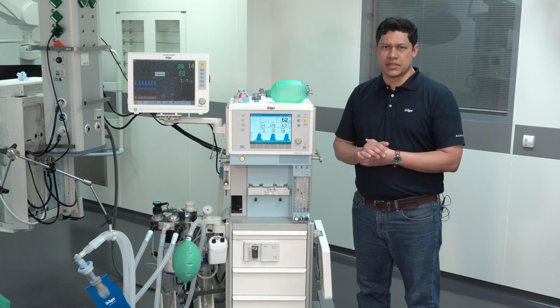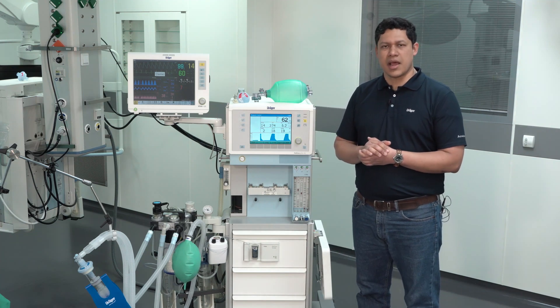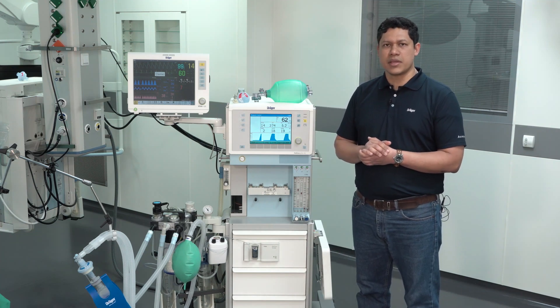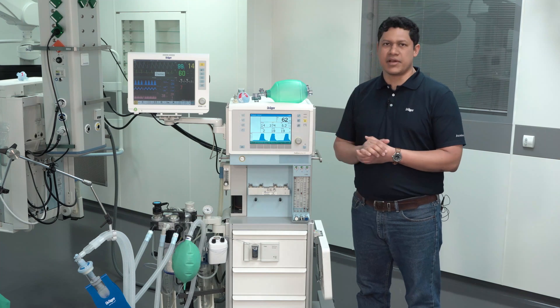Please remember that drug nebulization and aerosol therapy is not suitable for anesthesia devices.